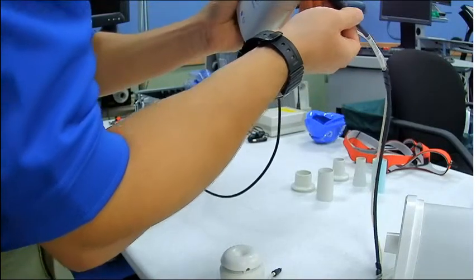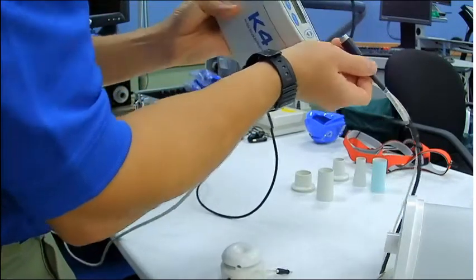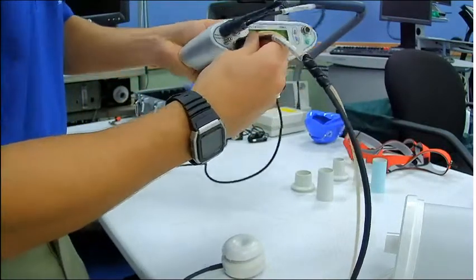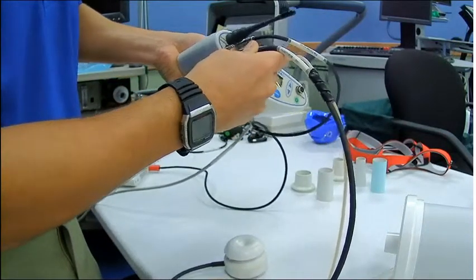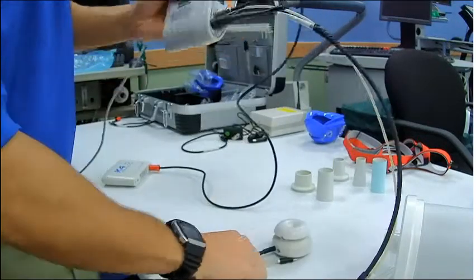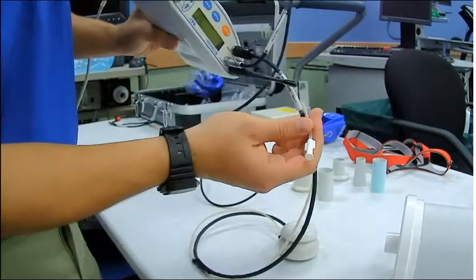That's not the right connection. We'll come over to the other side. And this one's a little bit trickier, so you're going to want to look on the inside, just like you saw me doing, before you fit it in there.